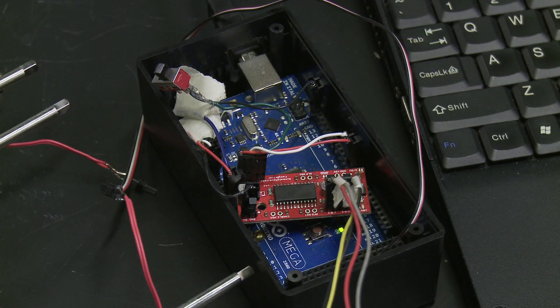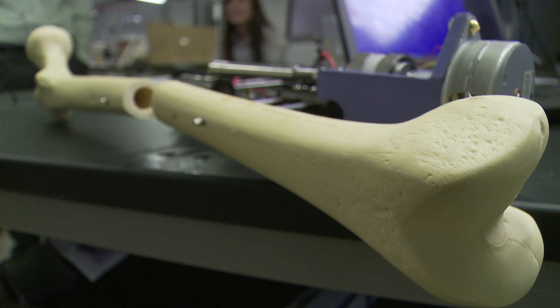So we are team Break and Make, our team BAM, and we were working to improve the currently existing device for completing this procedure. Our innovation is to automate the whole distraction process and create a force feedback that is customized to personal growth of each patient.